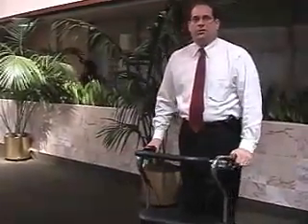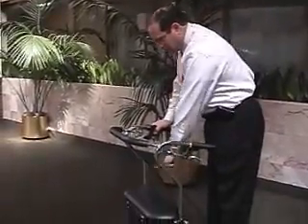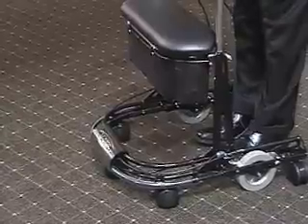The U-Step has many advantages over other walkers. The first major advantage is having this U-shaped base, which is why it's called a U-Step. It surrounds an individual, embraces a person very well from falling. They're braced in front as well as in back and side to side. This is excellent at stopping falls.